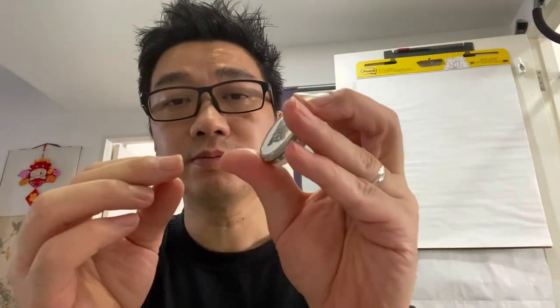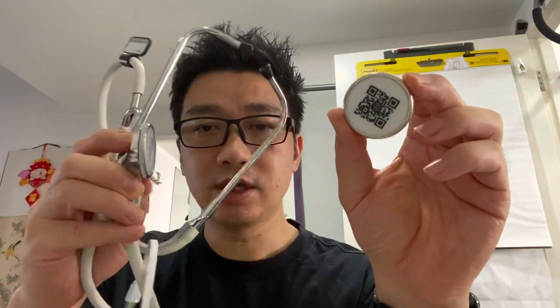Very good - it works. There's a new version coming out very soon, or it may already be out, which has noise cancelling, so any background noise can be cancelled if you're in a noisy environment. However, this is not registered yet - it hasn't been approved as a medical device because it started as a Kickstarter. There are other companies with proper digital stethoscopes but they're very expensive. I think it's a really nice advancement in tech, moving away from the old traditional way. Doctors can potentially use it for training.